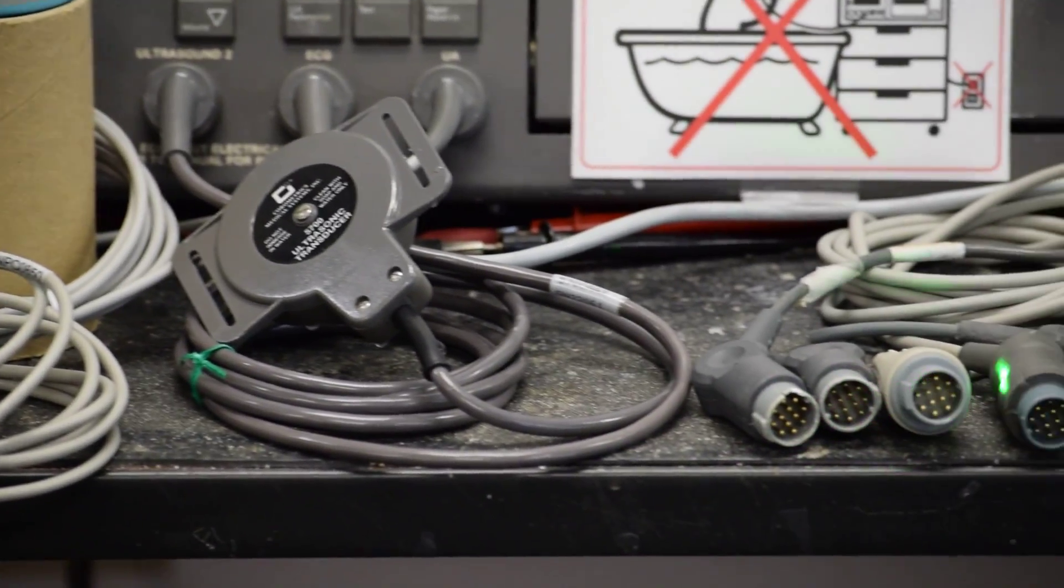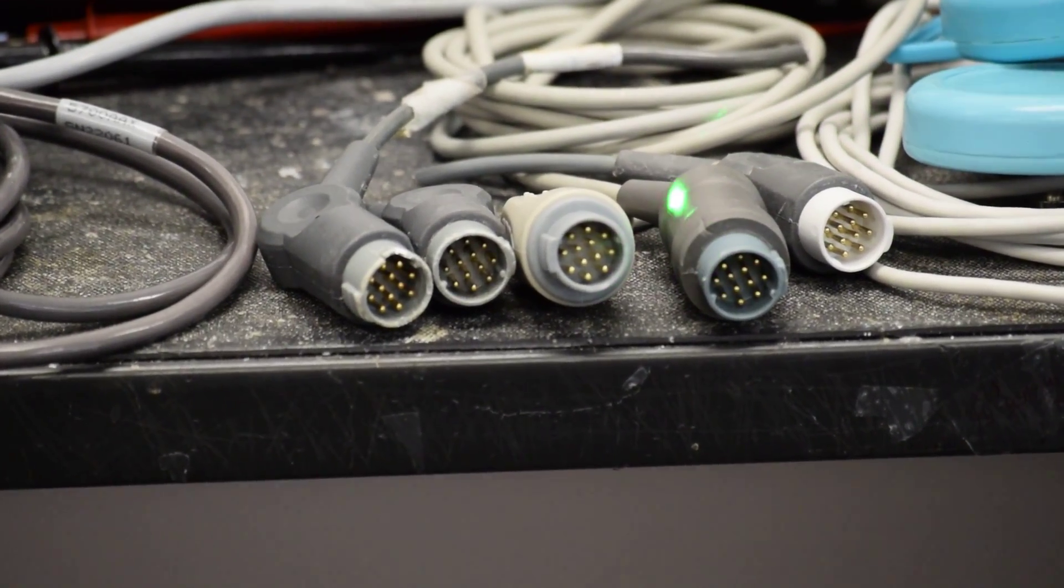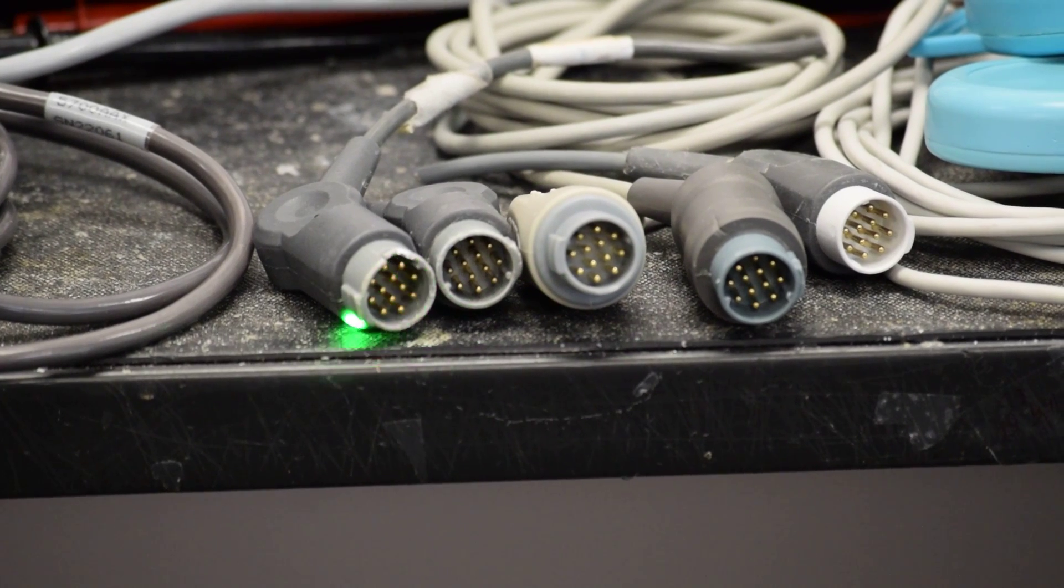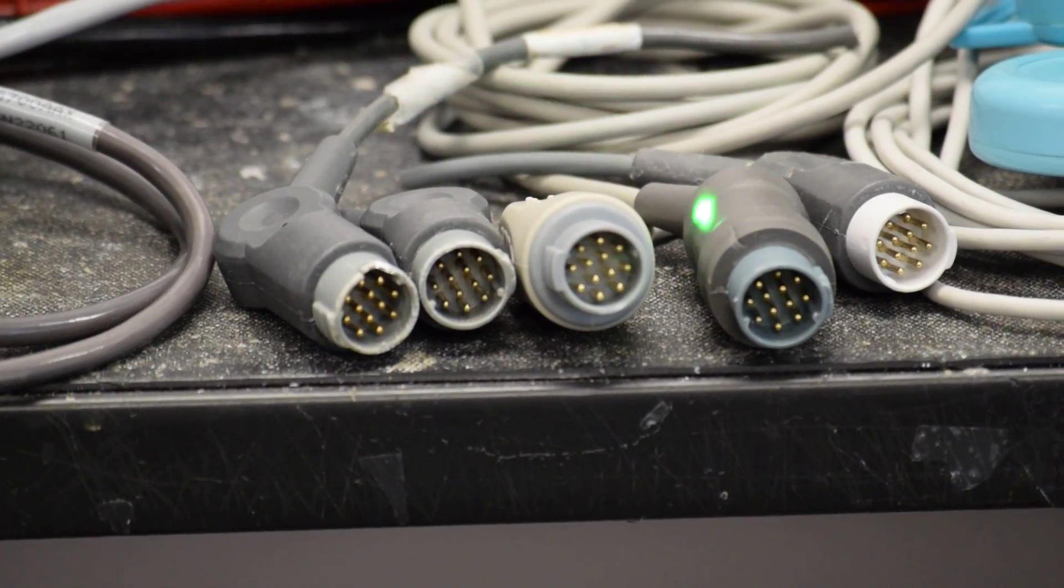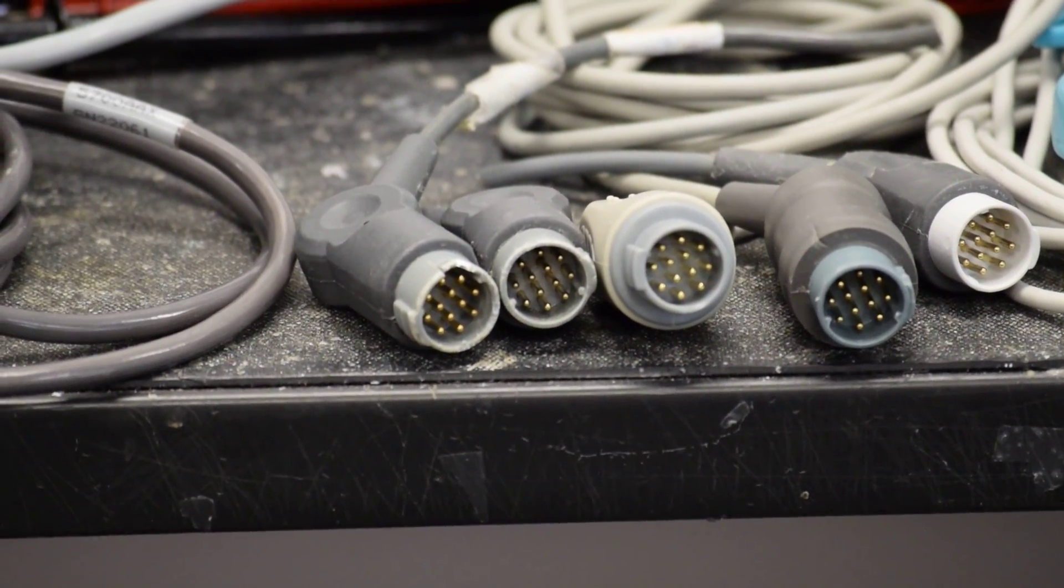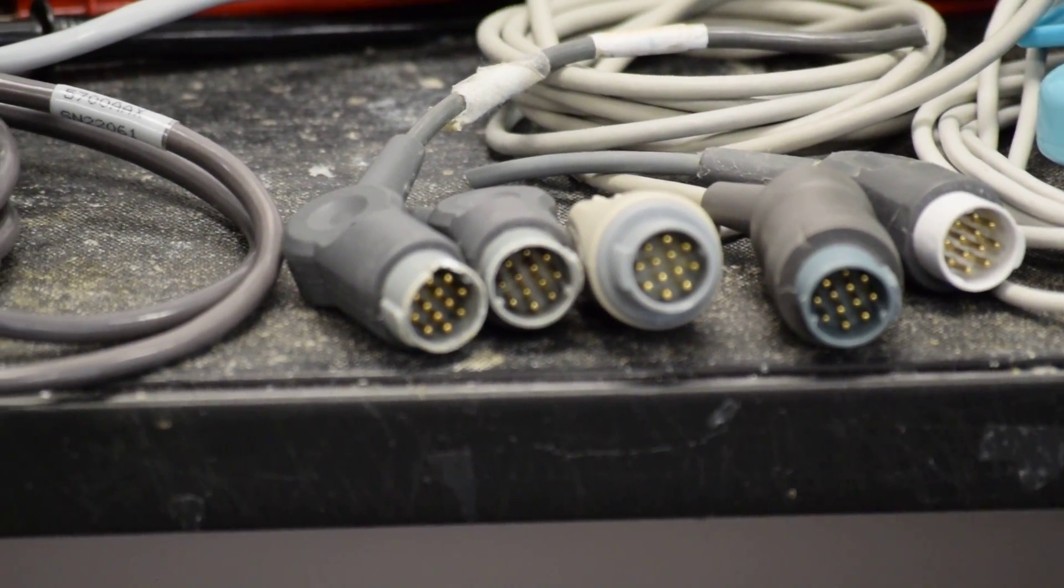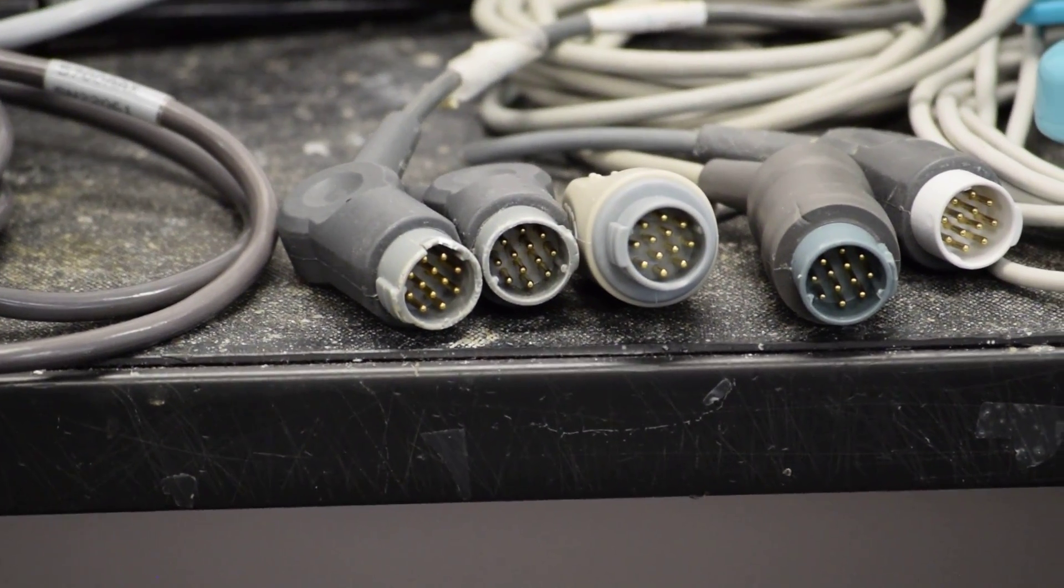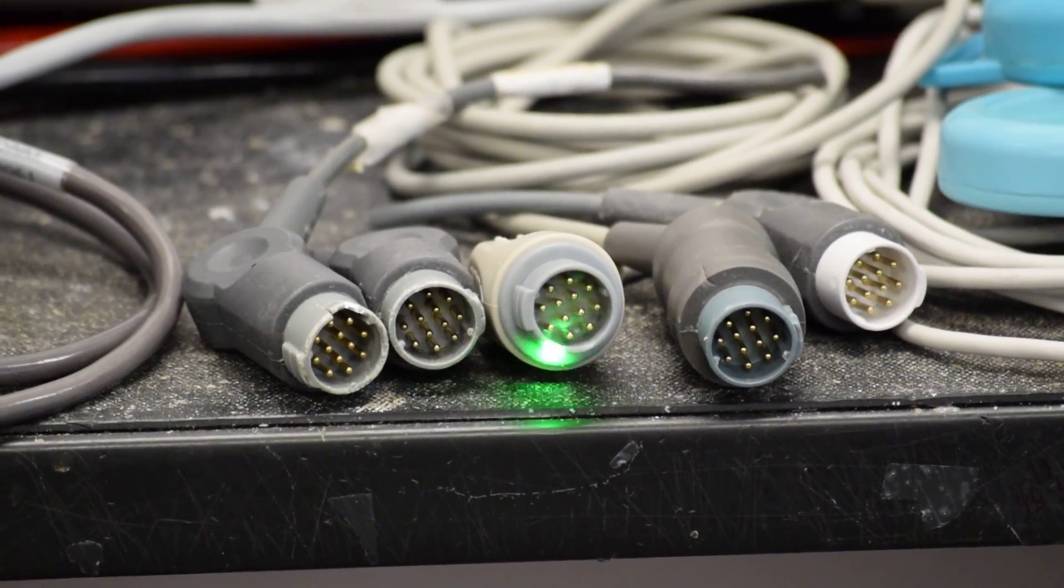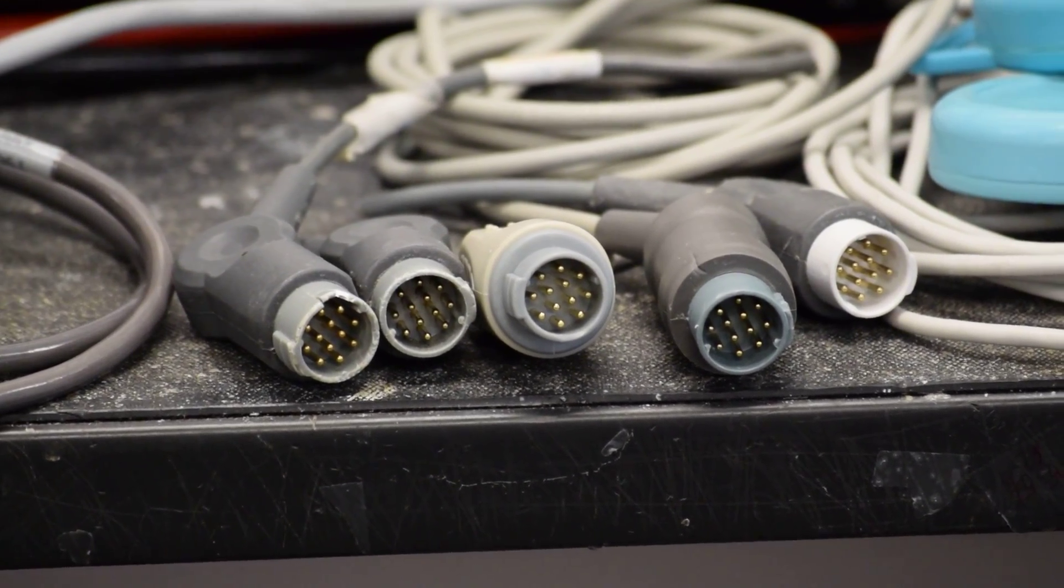The problem starts when aftermarket parts are used, especially the molded connectors that you see here on the right. These are aftermarket molded connectors from different vendors. No matter where they come from, the quality is so cheap. In order to reduce cost, all the materials and processes used are very cheap in quality.